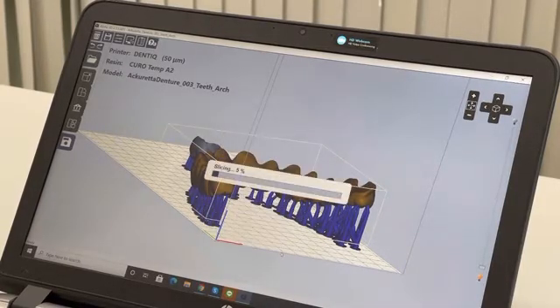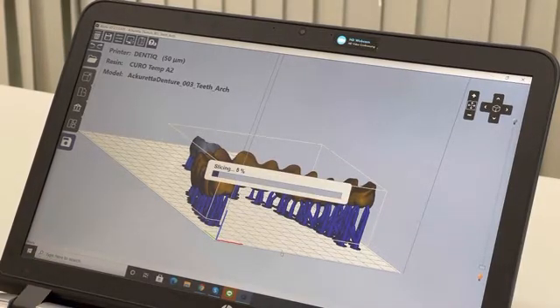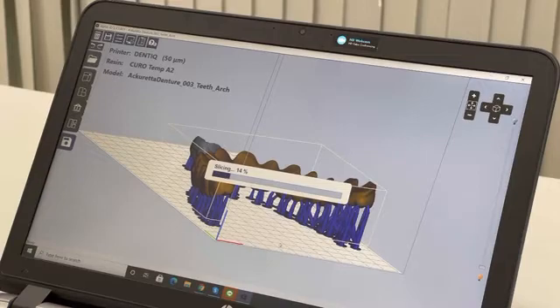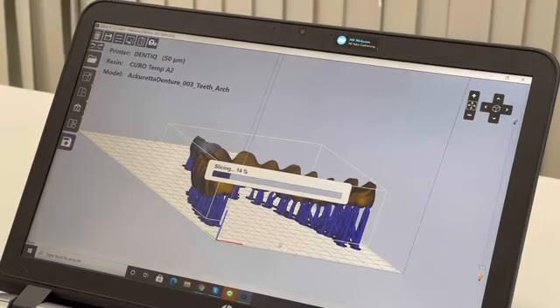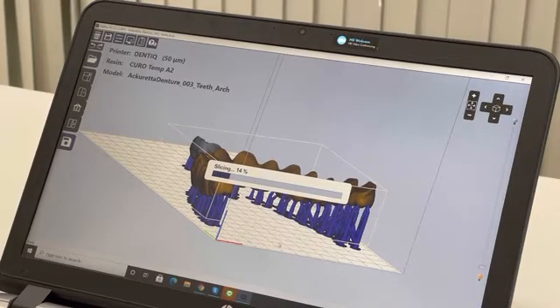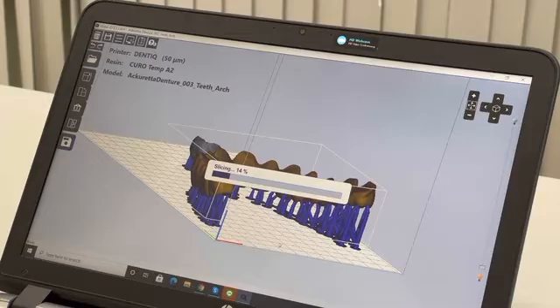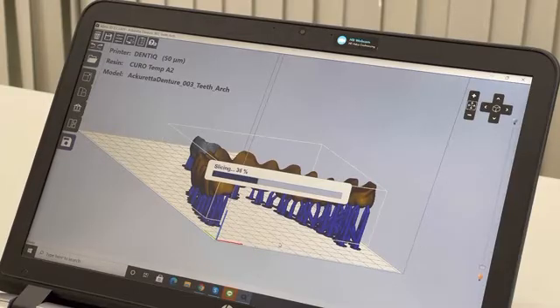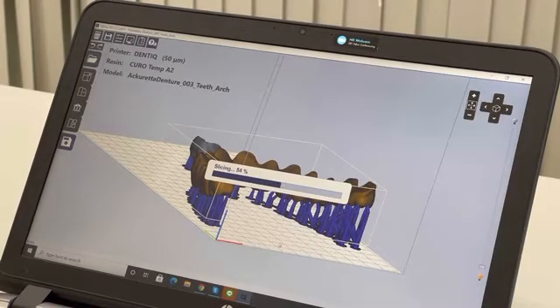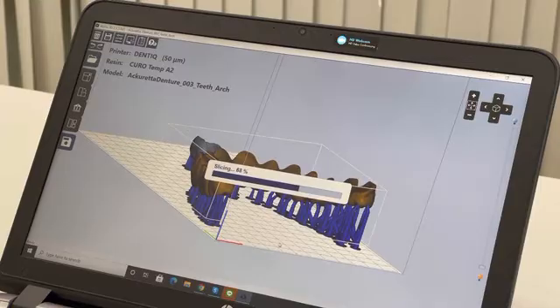Save it. Now we have the slicing. After the slicing, I will have my i3dp file and my ibf file, which is my project file and my print file.